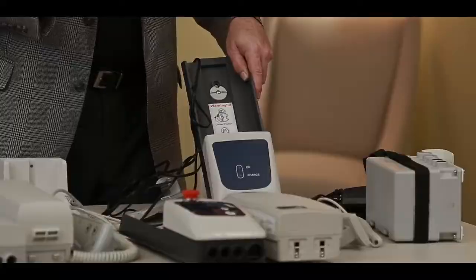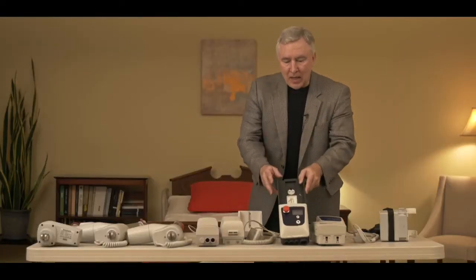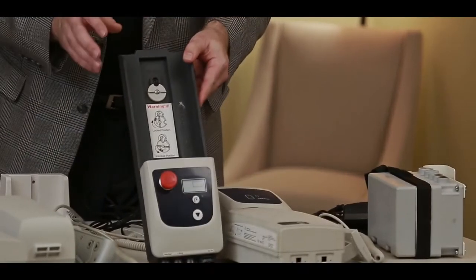So you can actually have two batteries for the patient lift, one charging, one on the lift, and switch them out at any time. But you can see that the second style has a distinct look to it. That's how you would identify that style.